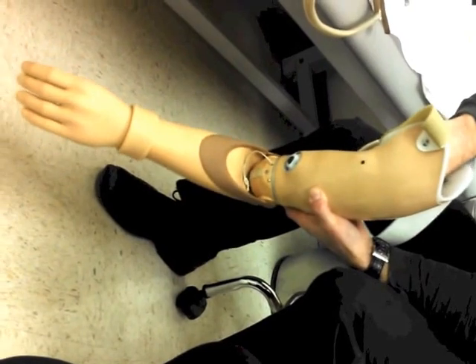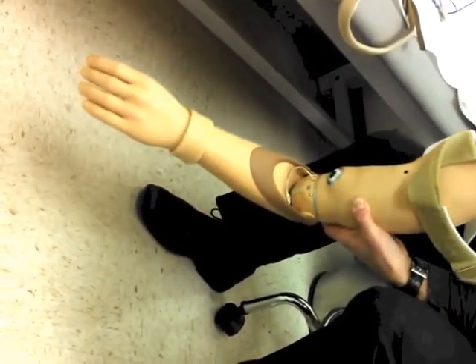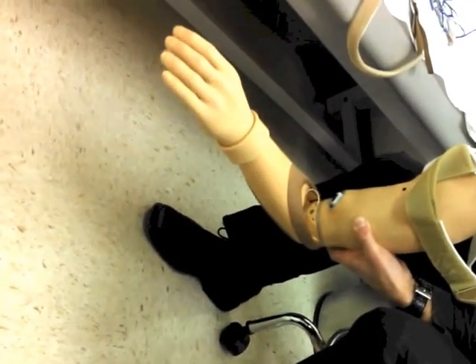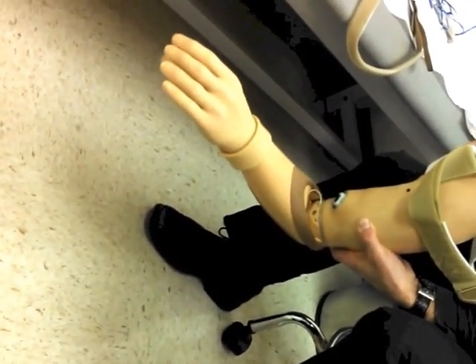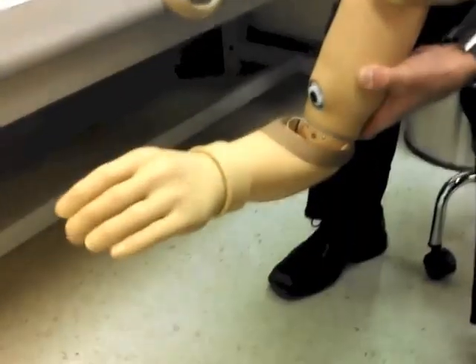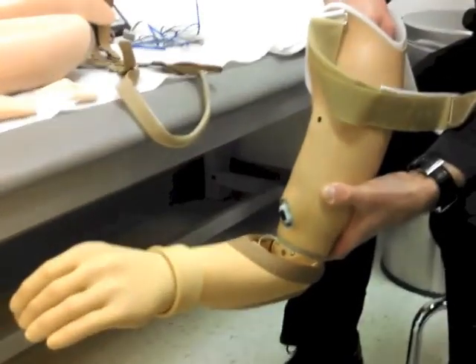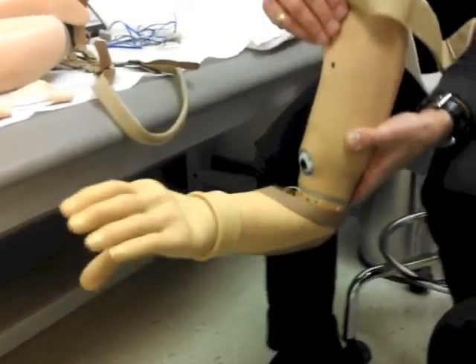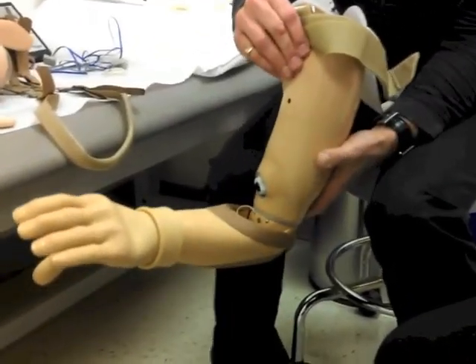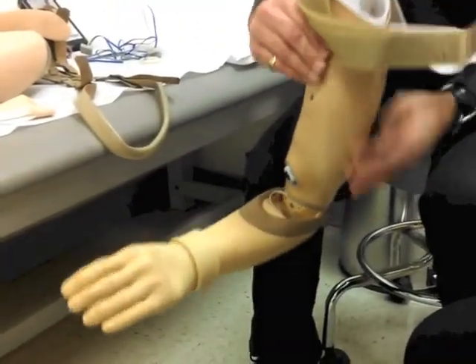When you hit them together, it's a little hard to demonstrate exactly here. Actually it vibrates here — the hand will open, then the back muscle activates, and the front muscle will close it. It does fatigue you quickly when you're trying to use these muscles front to back.